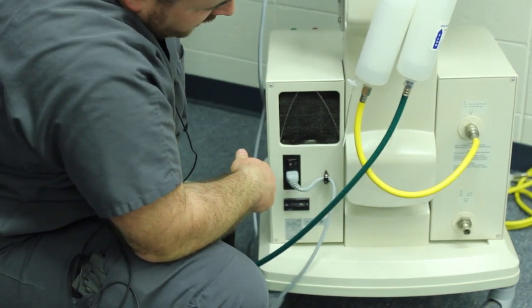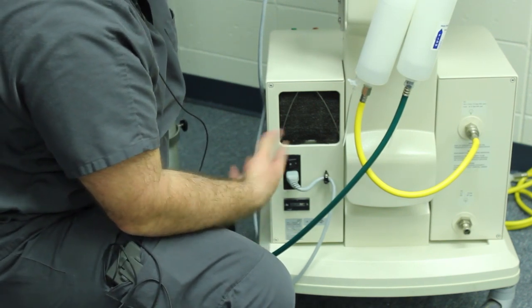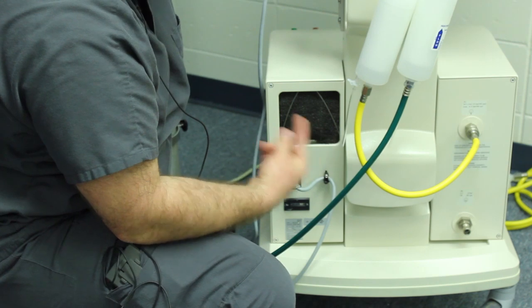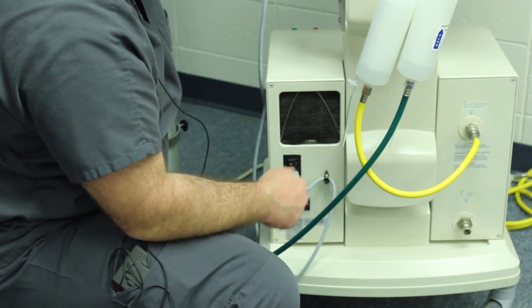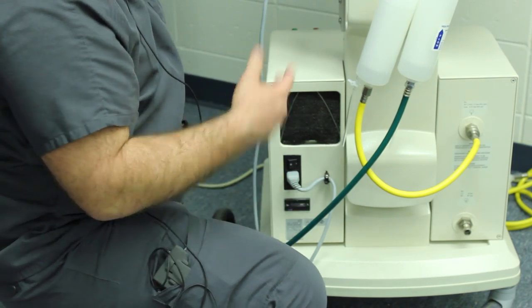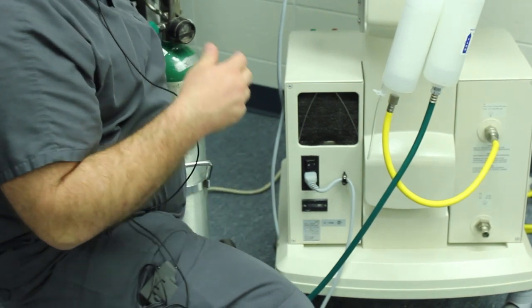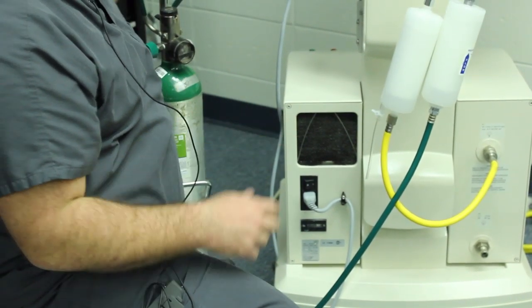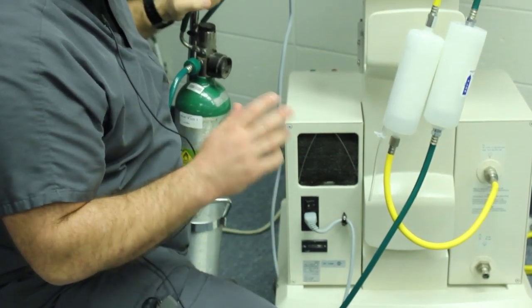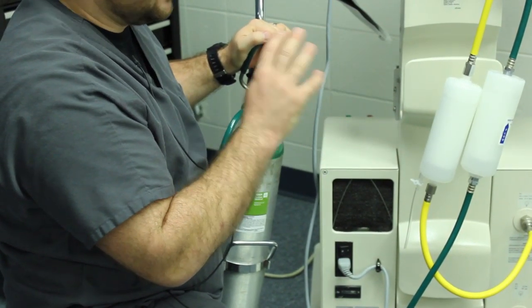You can hear it pumping — it pretty much constantly runs. You might hear it shut off briefly, but you can hear it constantly humming. Once the pressure rises through all the tubing, that's the air side covered. Now we have another option, but we have to give the ventilator some oxygen — that's just the way this thing works. If we don't give any oxygen and we're only running off the air hoses, the FiO2 and oxygen sensors can get all messed up.